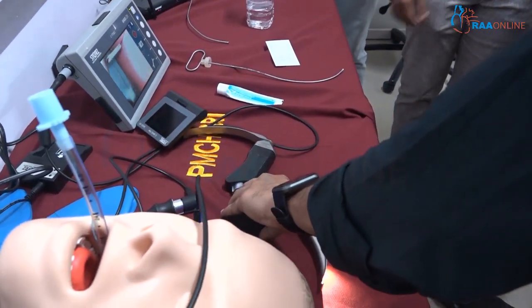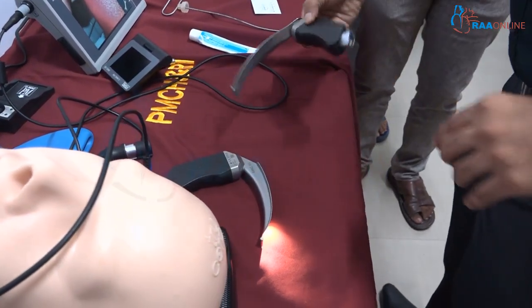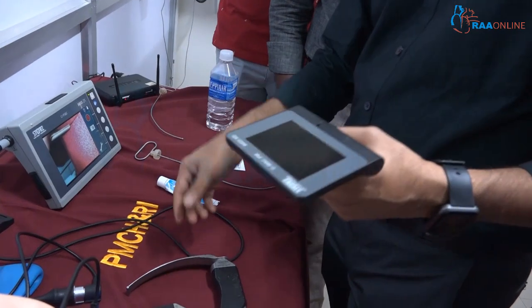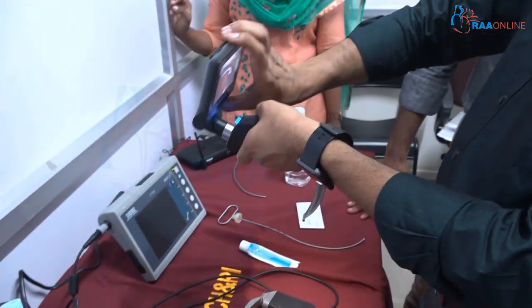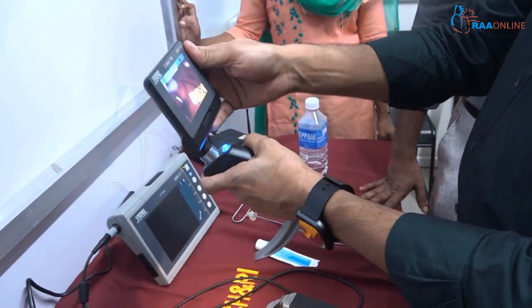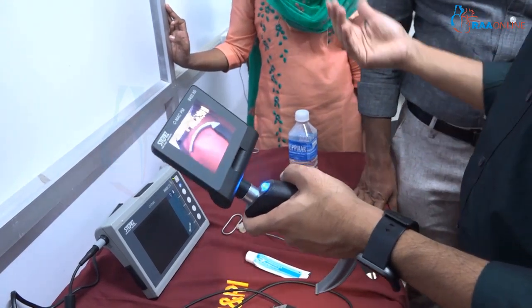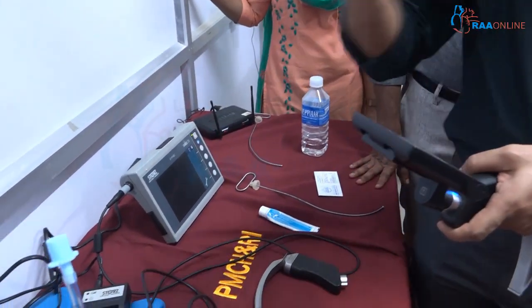Different blade sizes are available — size three and size four are here. This is one of the newer modifications where you can attach the camera and rotate it 360 degrees. These minor variations — blade size, camera position, degree of view, anti-fogging features — differ from one video laryngoscope to another. Three participants can practice here and three can go to the other station.